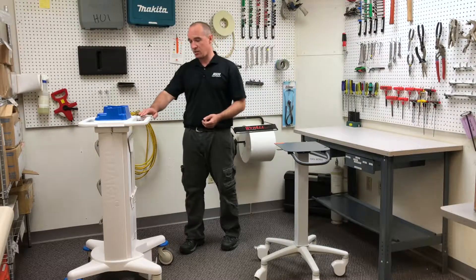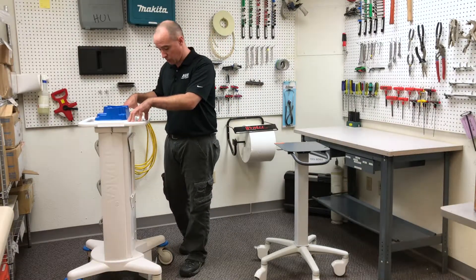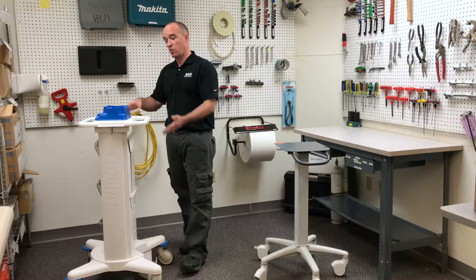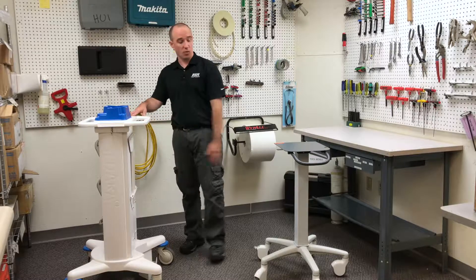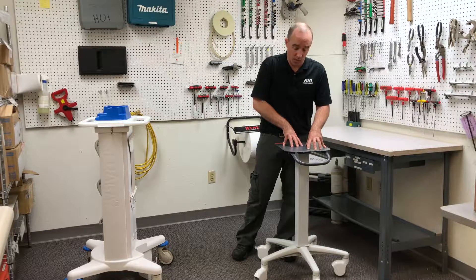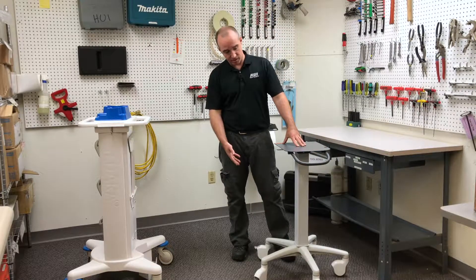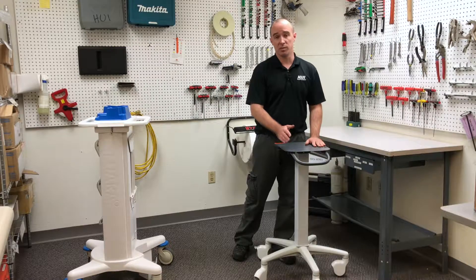At the end of the day, you have a cart that has a loading system not impaired by wear, brittle material, with very well-known loads, and so its safety factor according to the table is four. In this case, we have again a system not impaired by wear, ductile materials, and a very general or approximate loading, and so the table tells us this is also a safety factor of four.